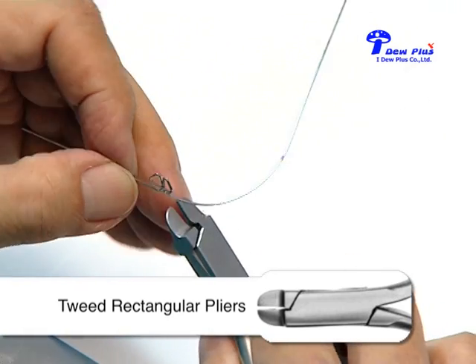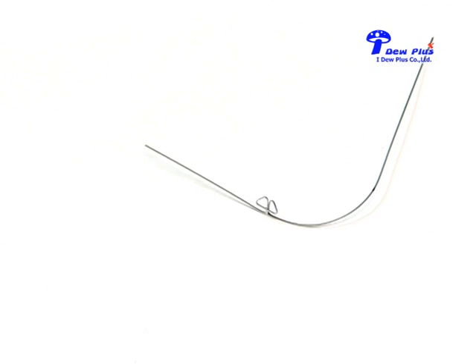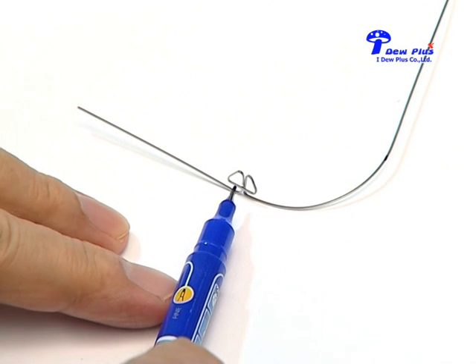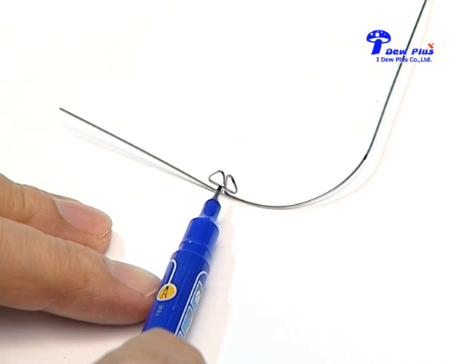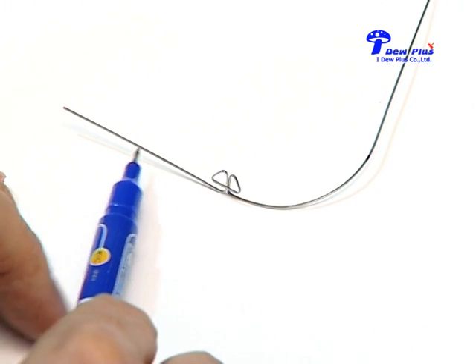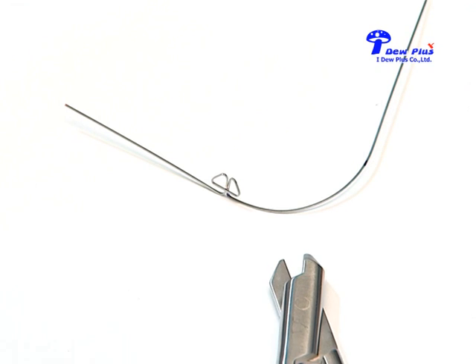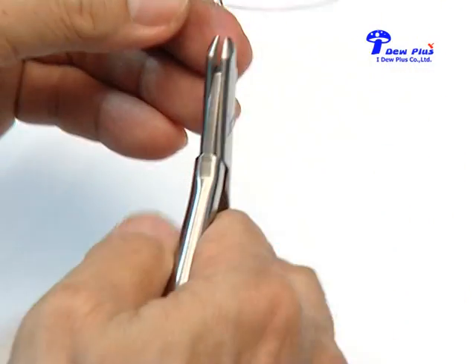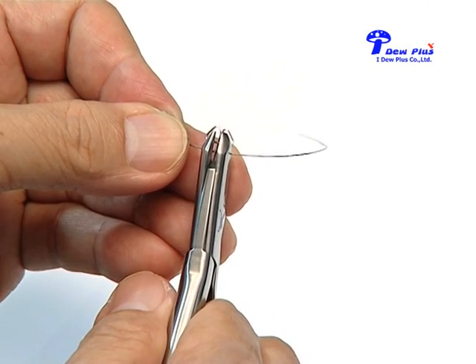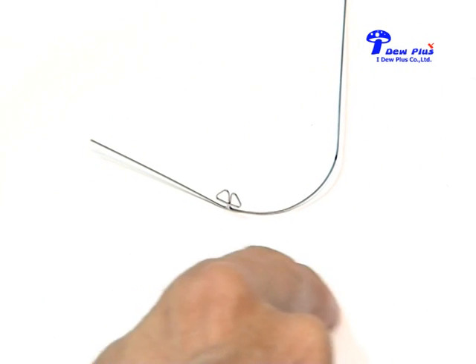Now two deltas are formed. But this part is not in the same line, so a small bend needs to be created at this area to make the distal end go inside. With other pliers or three-prong pliers, this bend will be done. Now you can see a harmony curve of the arch is formed.